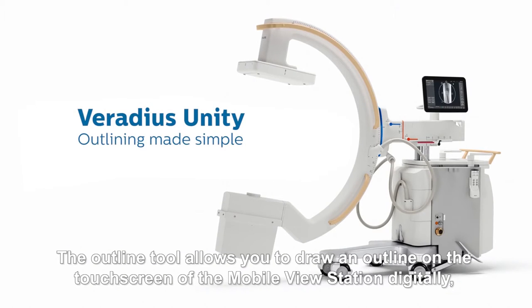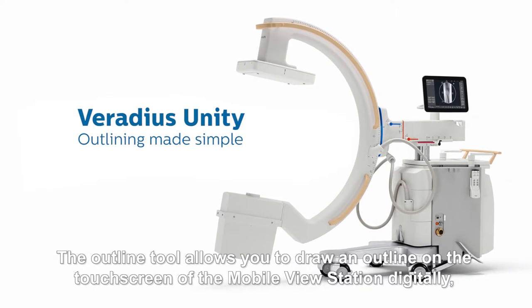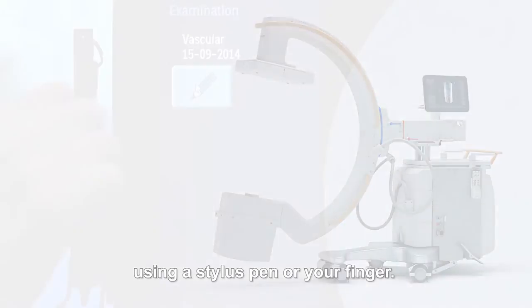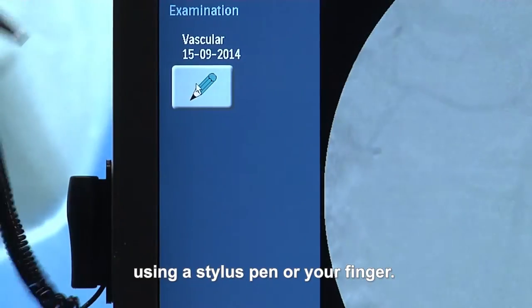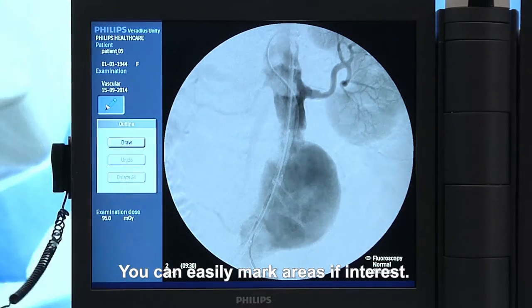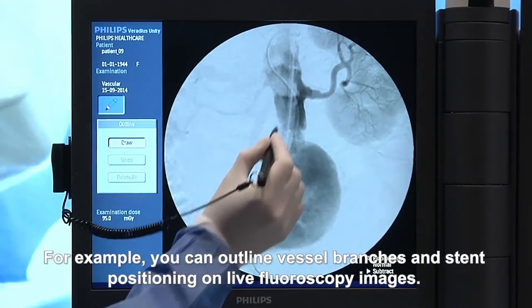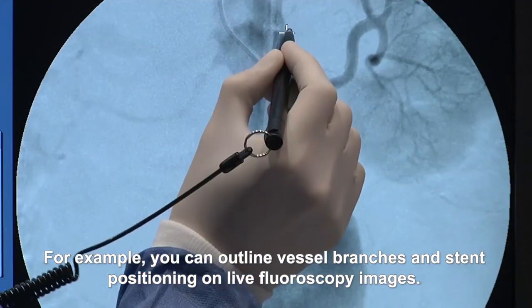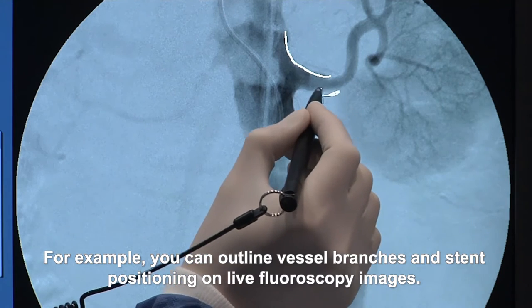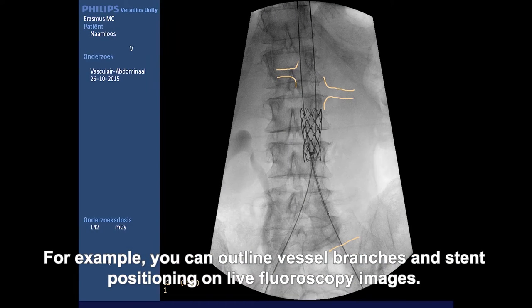The outline tool allows you to draw an outline on the touch screen of the mobile view station digitally using a stylus pen or your finger. You can easily mark areas of interest. For example, you can outline vessel branches and stent positioning on live fluoroscopy images.